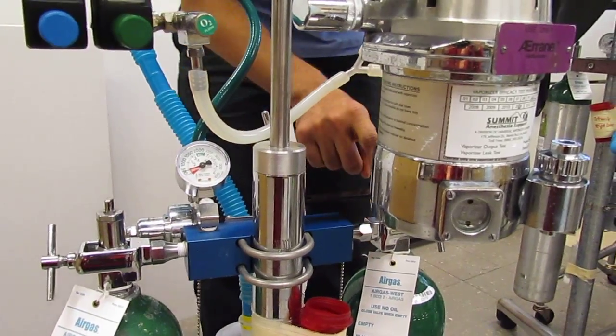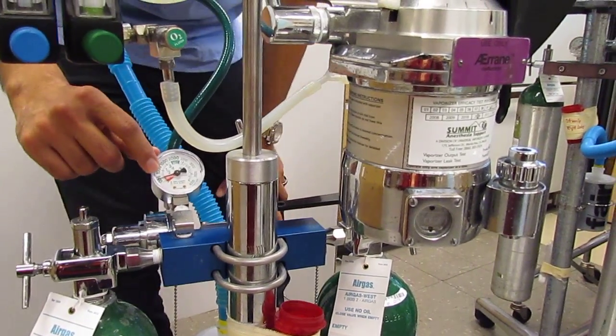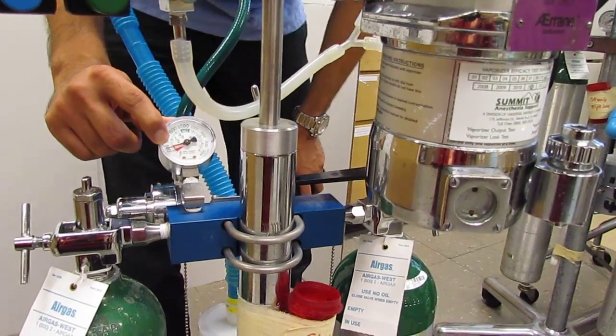When I do that, remember right tight, left loose. When I do that, on my manometer, I see that we're just under 500 psi.